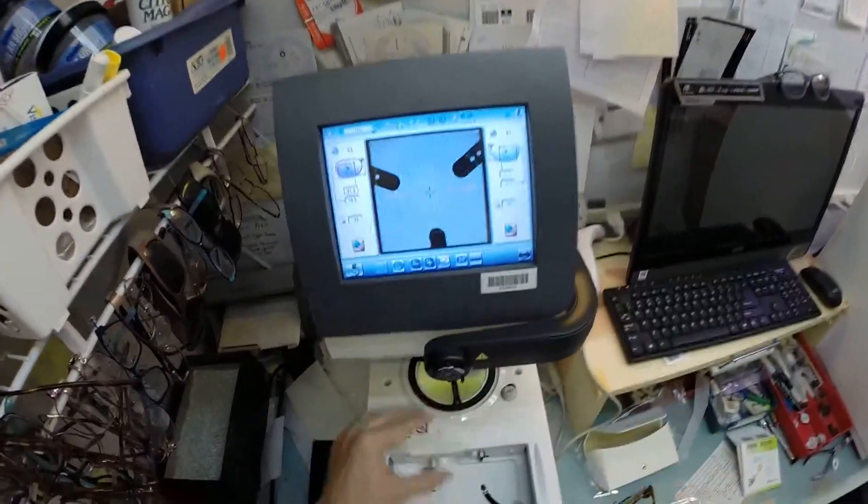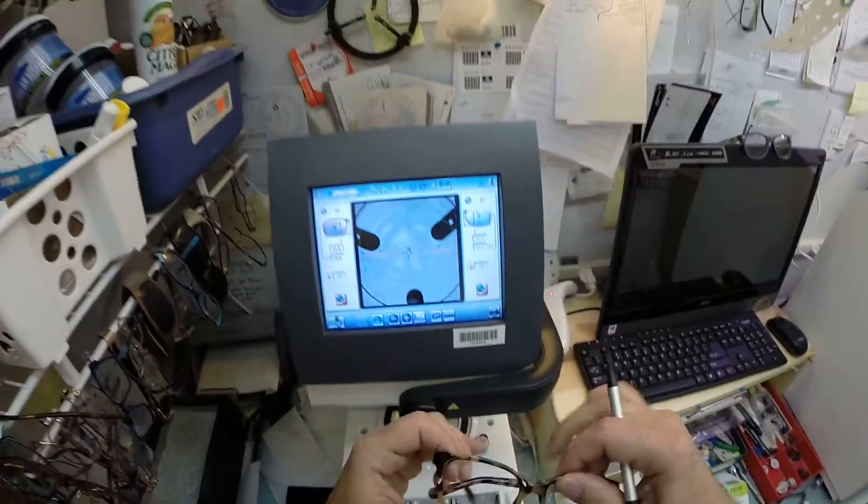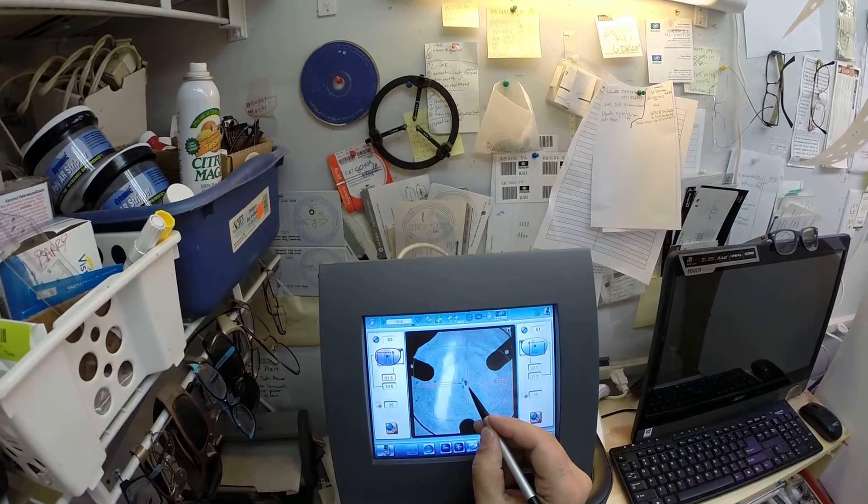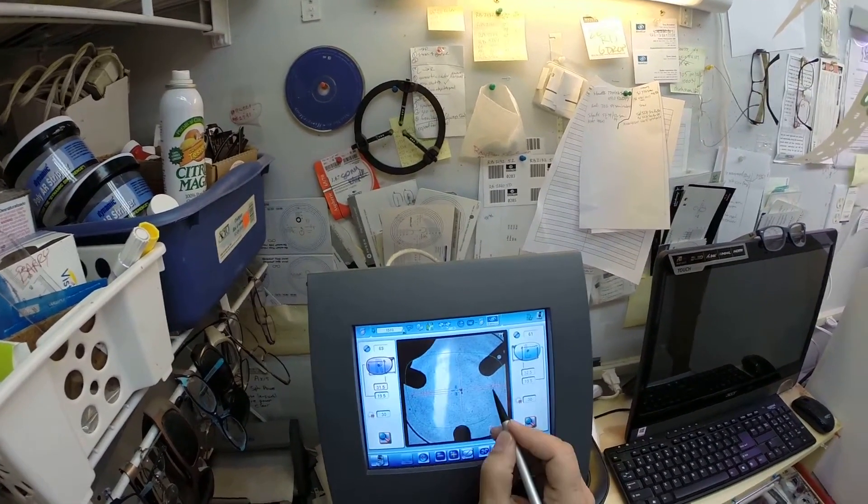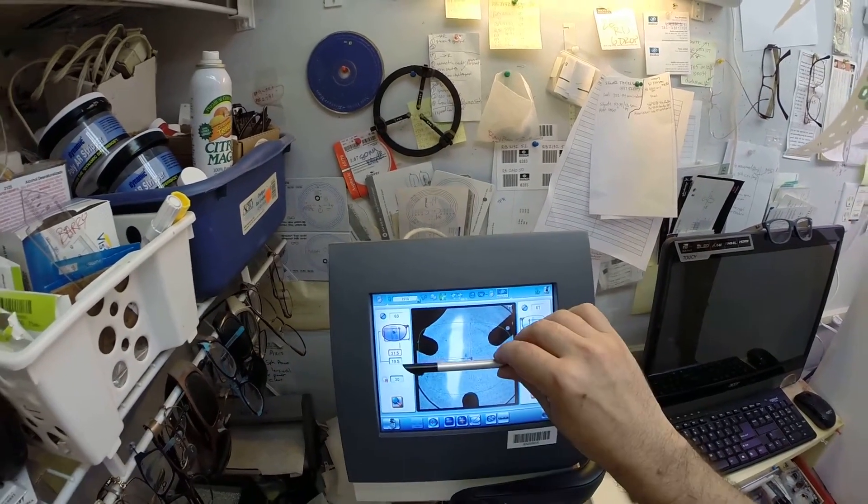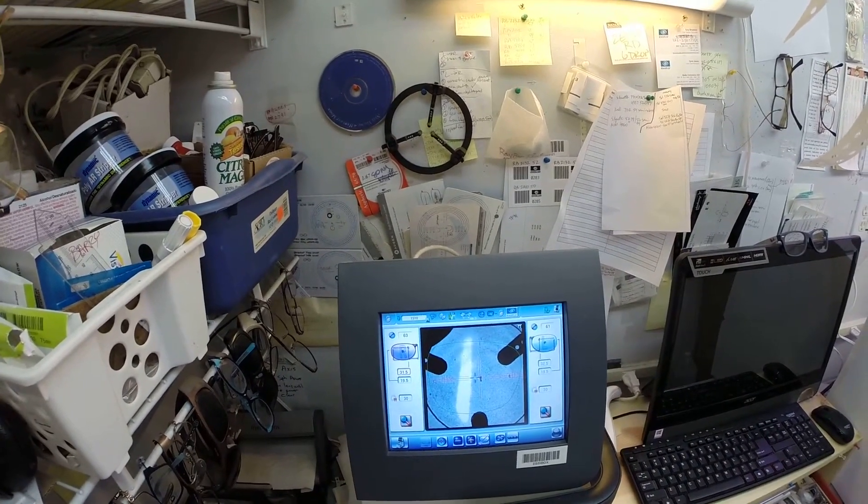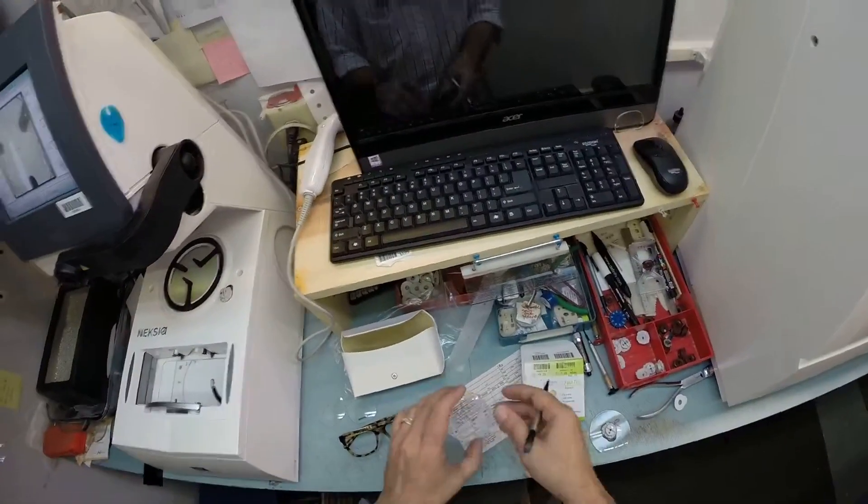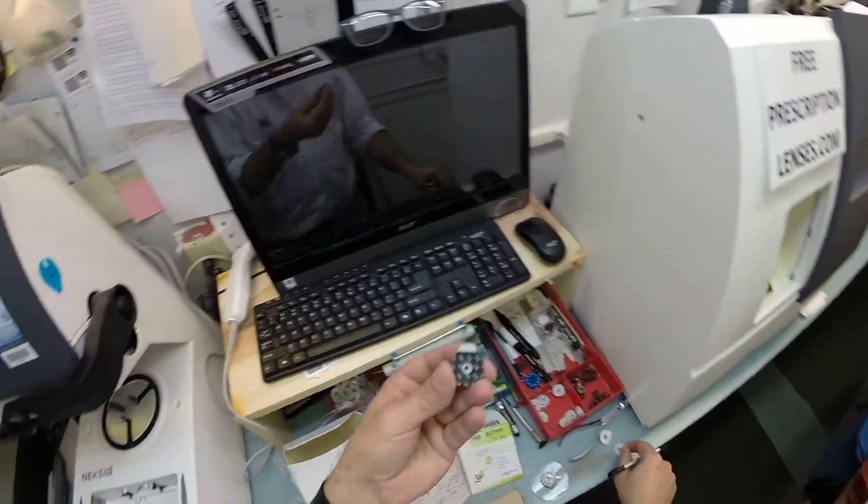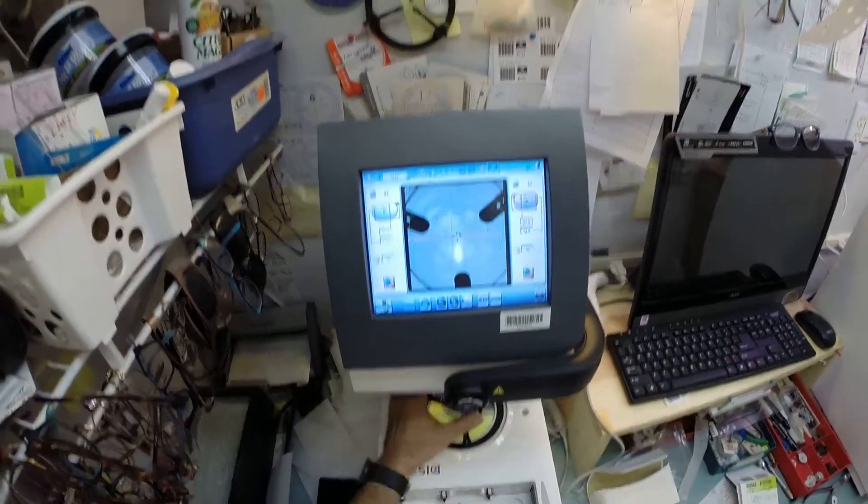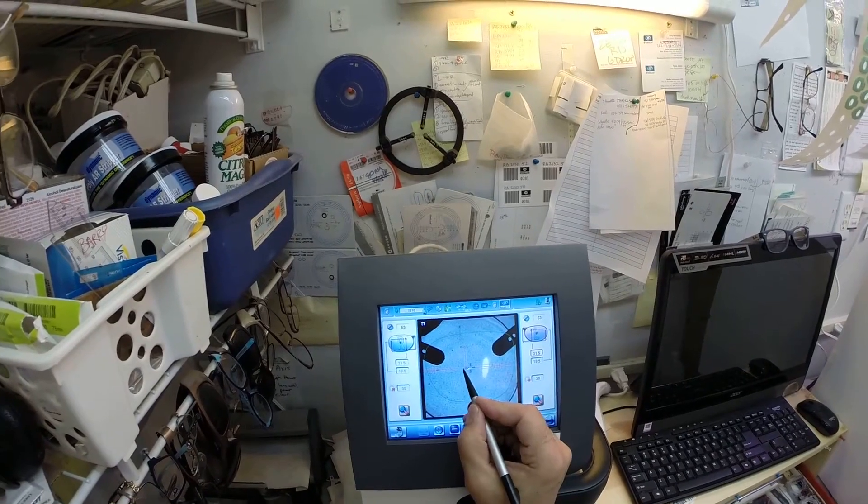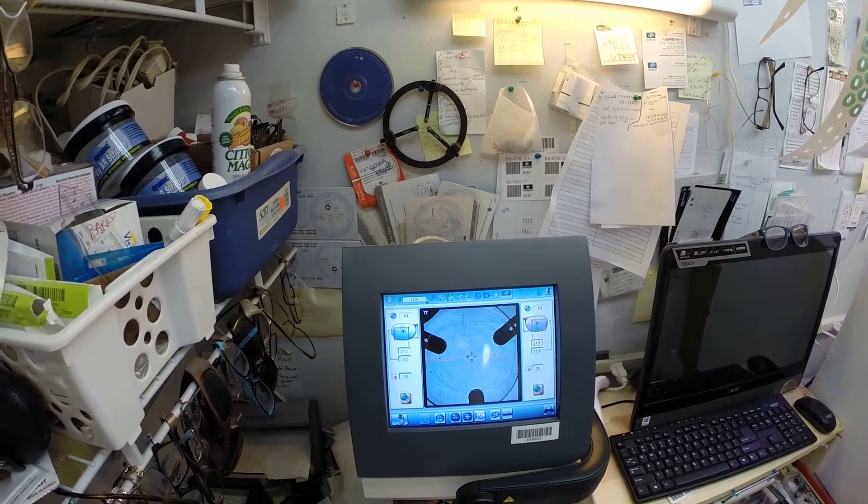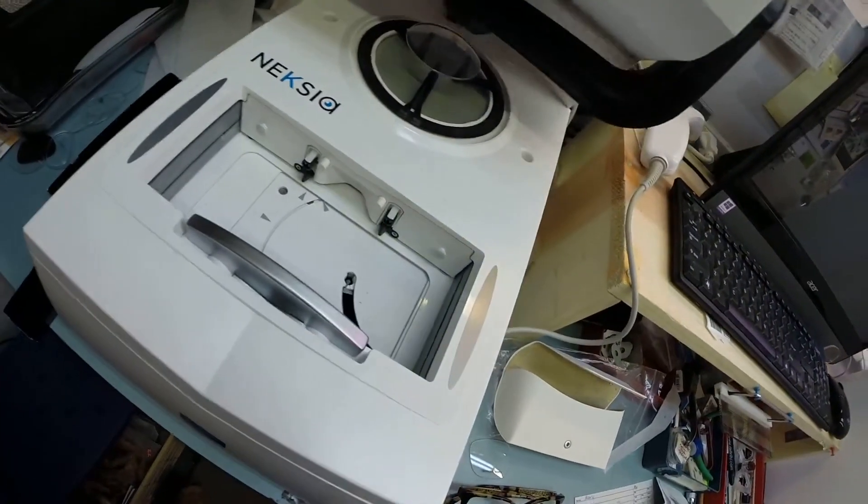Let me pull this paper away to show you this is a 3M brand adhesive pad. Put that in there. Now your pupillary distance is already at 31.5. The reason why I put those red dots in there, your lens has to be oriented just right for this to fit in there perfectly. So for you to see at your best. With those three dots of which this one is your optical center, the center of the lens, if this blue crosses the geometric center of the frame, if you measure it vertically and horizontally, that blue cross would be right there in the middle of which it is. Now your eye is just inset from there. So I'm going to put your optical center right there. Those two dots tell me on that orange graph tells me that they are lined up just perfectly and your lens is not off axis. And I'm going to hit that button and the arm is going to come down and place the block onto your right lens.